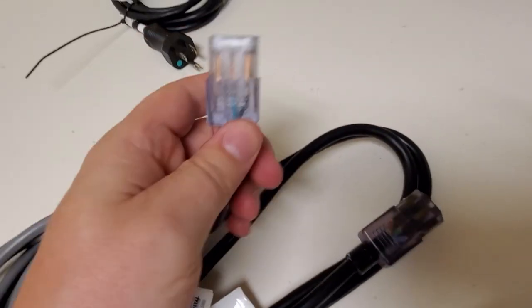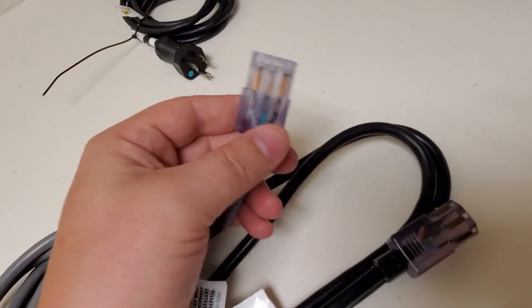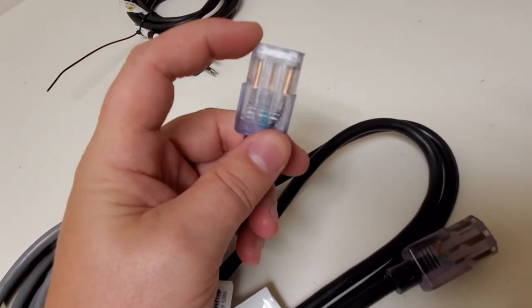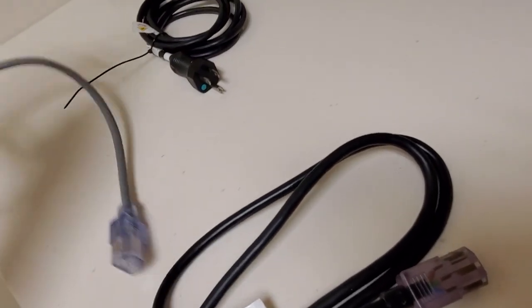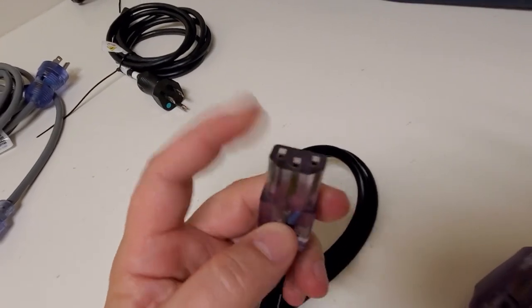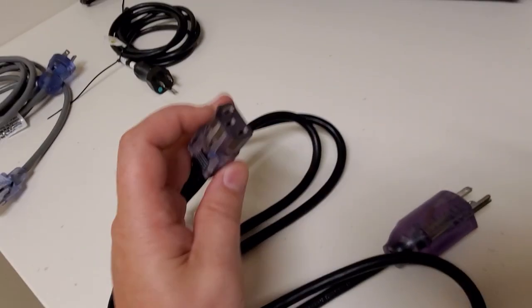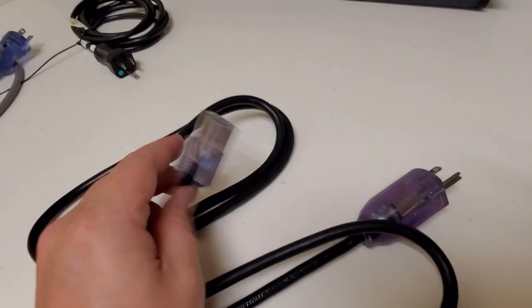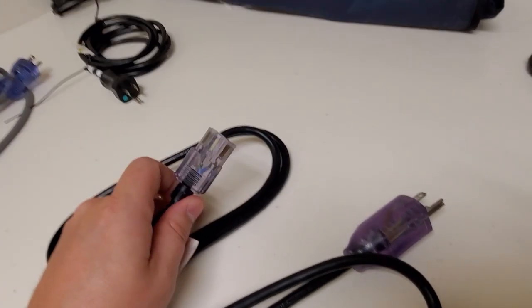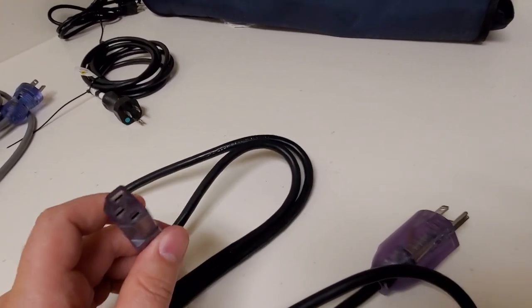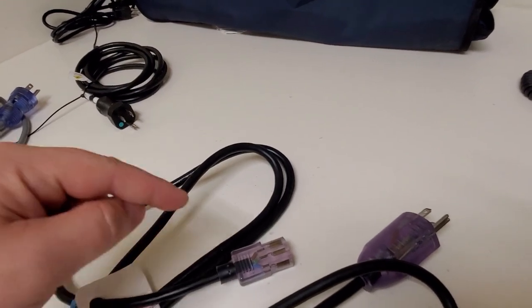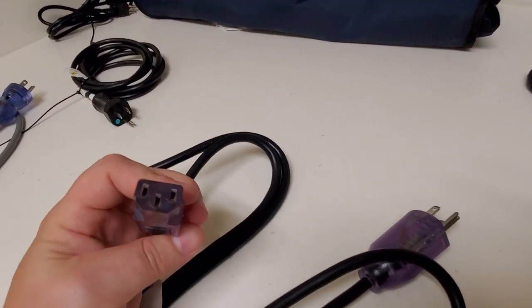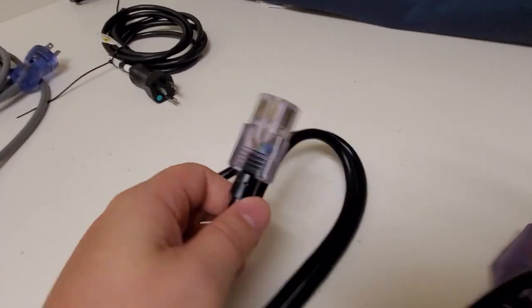So this one here, this type of cord is the one that we're going to have problems with when the cord starts moving around. Not only does it not have that subframe molded into the cord, but the pins are way further down into the female IEC connector. Now this is an IEC connector. That means it's a standard. You can find them. There's different ones. There's 90 degree IEC connectors, etc. But get used to searching for IEC if you're looking for power cords. We're biomeds. We've got to use the correct terminology.